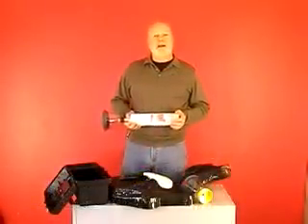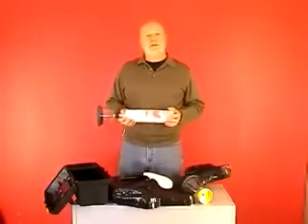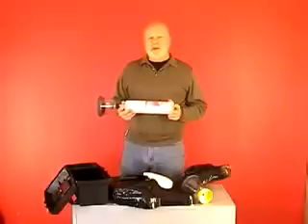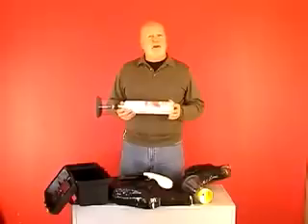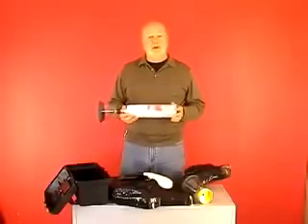The McCulloch resuscitators are lightweight and tough. For cleaning, simply wash in a one-to-twenty solution of bleach and water, shake and dry. Remember, every unit comes with our two-year replacement warranty. And they're management tools — you may not need to use them every day, but you'll be really pleased you have one when you need it.